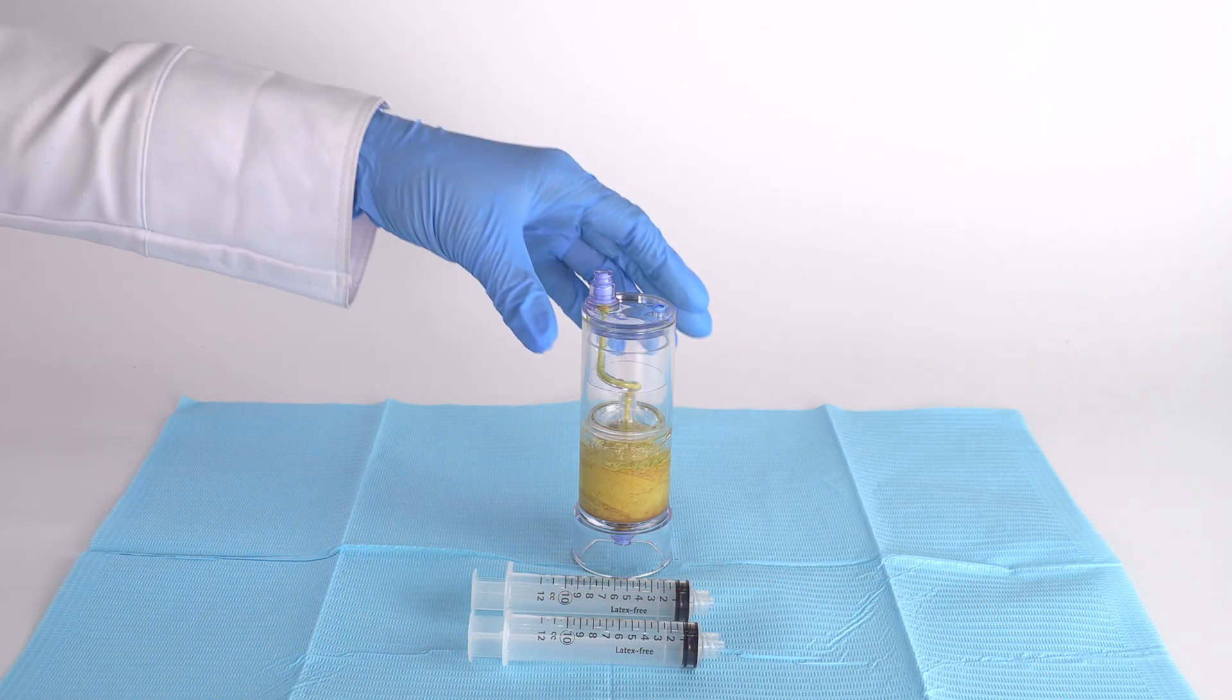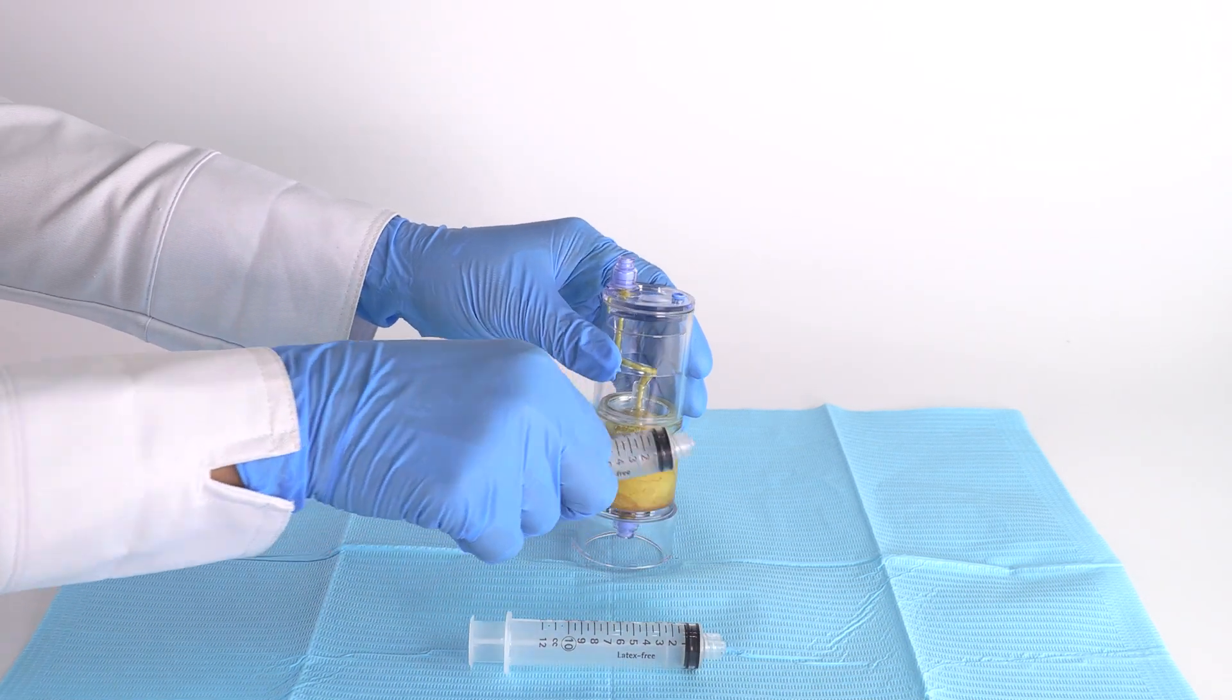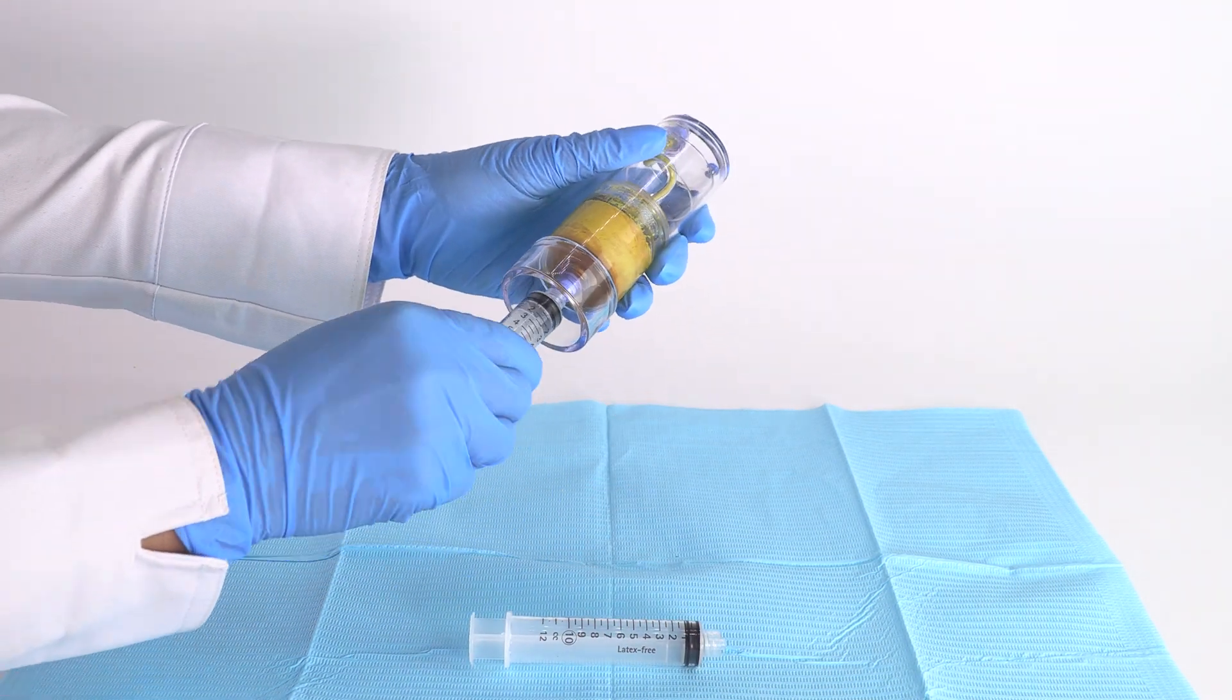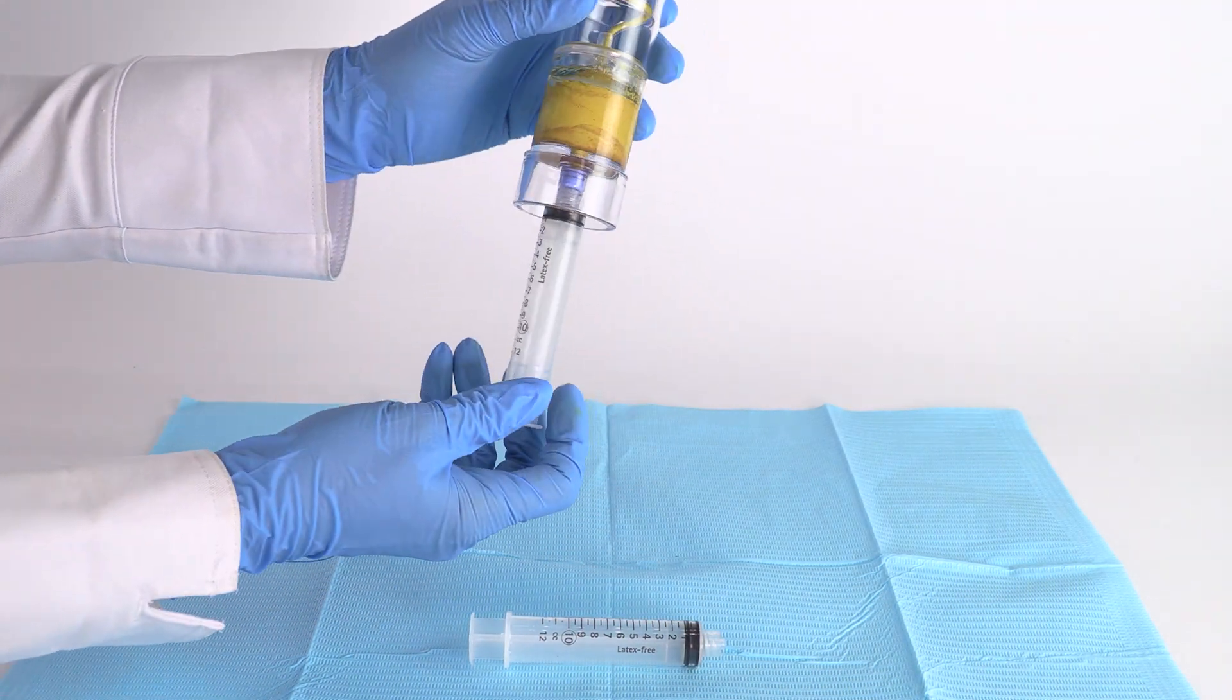Finally, connect the 12 milliliter syringe to the bottom port and aspirate the purely concentrated adipose sample.